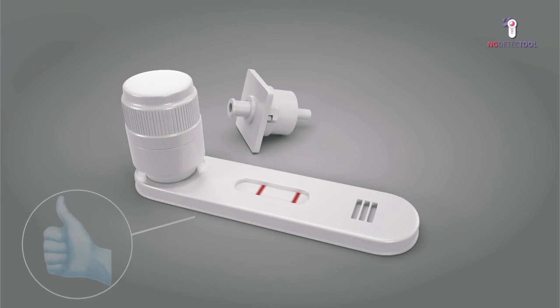The NG-Detect tool is easy to use and allows rapid detection of broad-spectrum beta-lactamases with high sensitivity. With the NG-Detect tool, you will save time and treat your patients in a more efficient way.